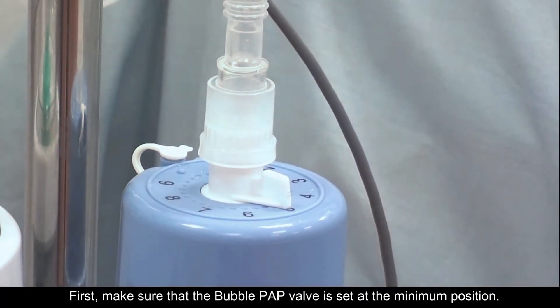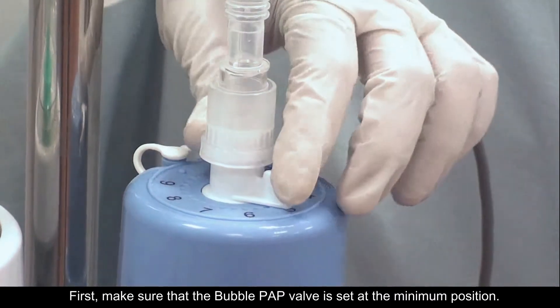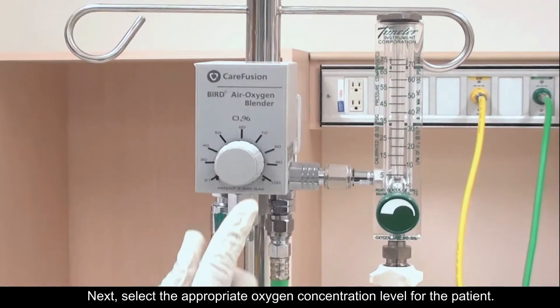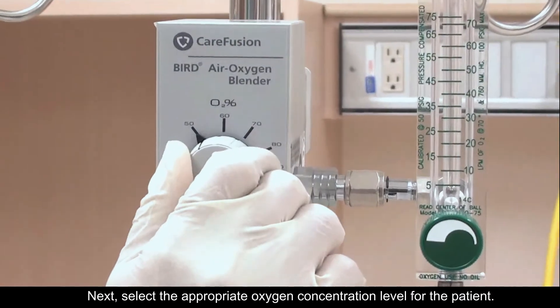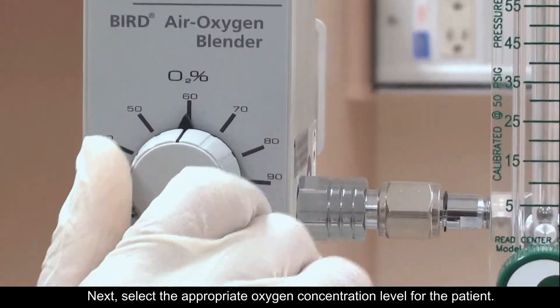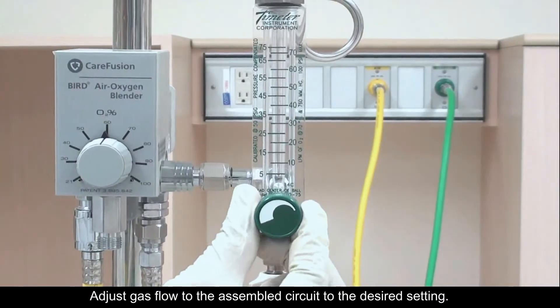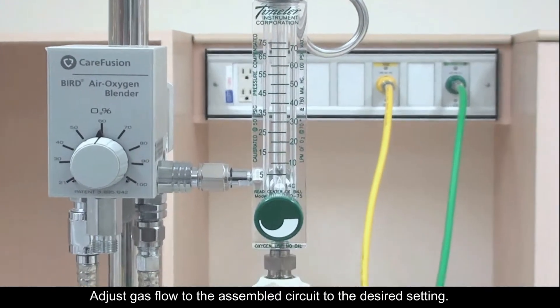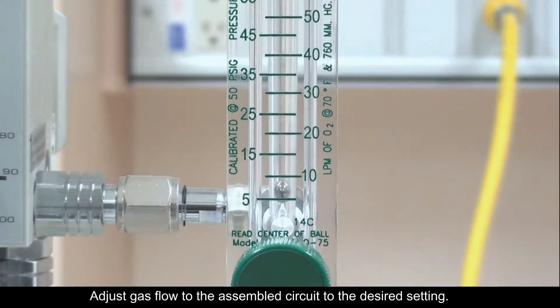First, make sure that the bubble PAP valve is set at the minimum position. Next, select the appropriate oxygen concentration level for the patient. Adjust the gas flow to the assembled circuit to the desired setting.